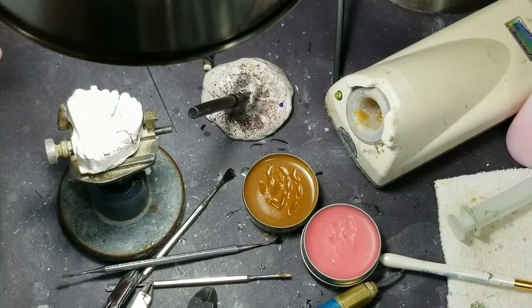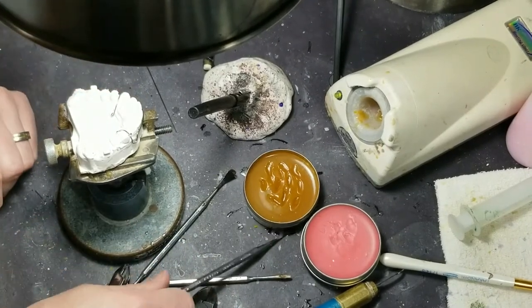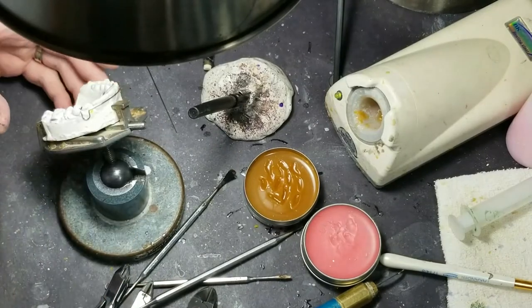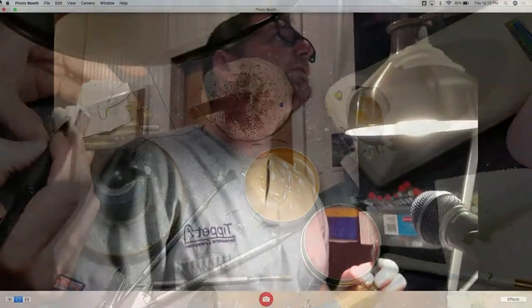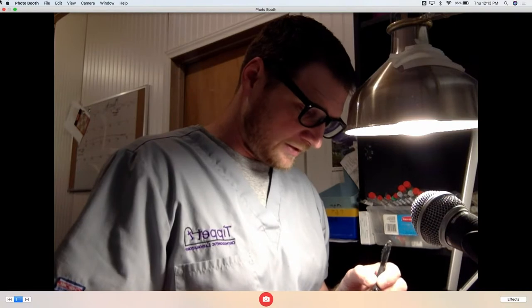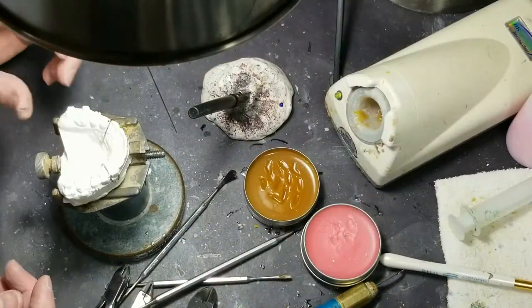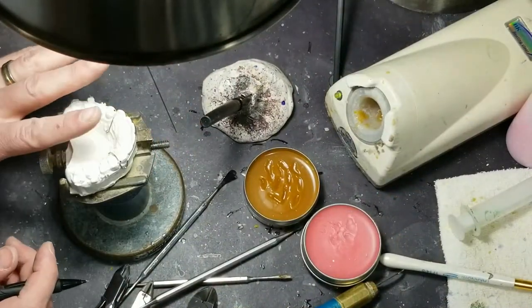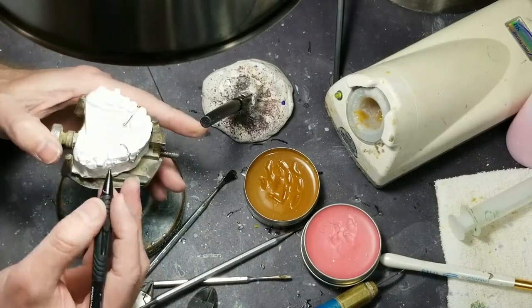I work with a doctor that uses bands — yes, and wire slides on. If you're calling this the wire slide — the bracket part — then yeah, that'd be a good clasp for you to use. The doctor can make this as tight as possible and really hold it up against the palate. The only bad thing is that it may rock a little bit, but you can come up with almost anything to engage that. You can come from the other side if you want.